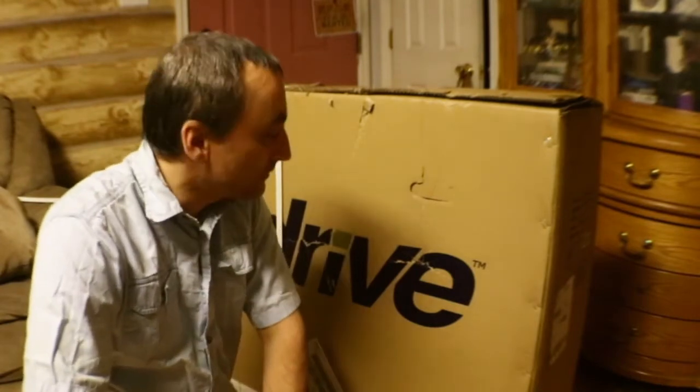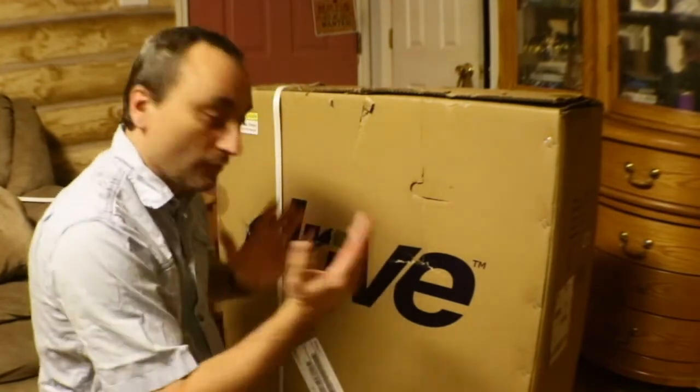Welcome back to Life's a Hard Ride. Today I'm gonna unbox this wheelchair and tell you what I think about it initially. This is an unboxing video, not a review. I try to stay positive, but I have two ailing parents — my mom is diabetic and has lots of different things, heart conditions, basically you name it she probably has it. So we decided to get a wheelchair so when we go out shopping it's easier for her to get around and enjoy the experience a little bit more instead of getting out of breath.